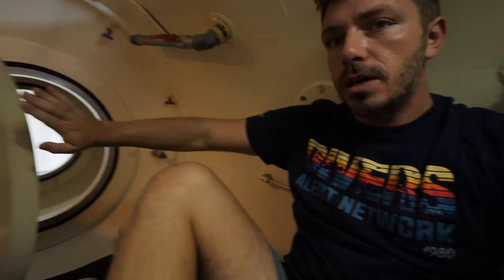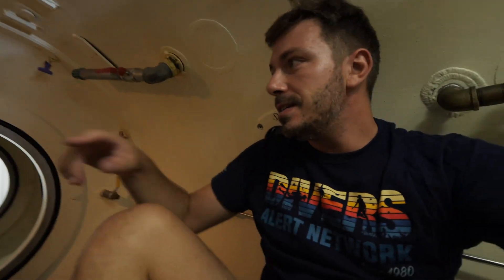When the operator opens the air, the tender closes this very thick door, which creates a seal that increases the pressure inside. There is never a lock or anything to twist like you see in movies — pressure alone maintains the system together. If there were a loss of pressure, it wouldn't be hermetic and we couldn't pressurize.